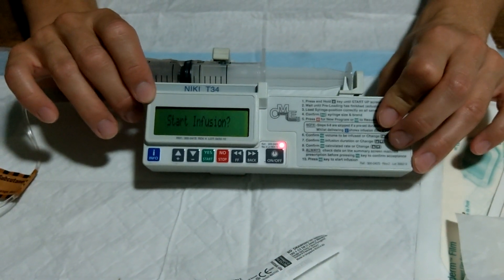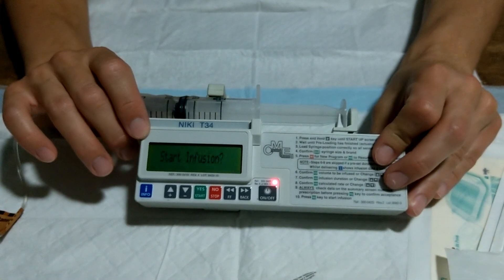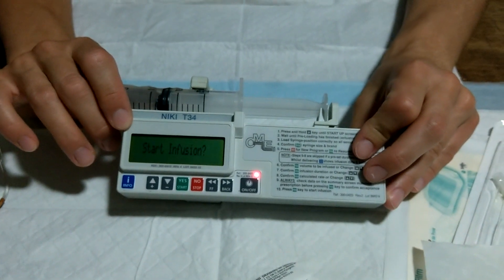As you can see, it's very easy to set up if you have everything prepared. Feel free to pause the video now if you need to, but otherwise we'll move straight on to a step-by-step approach.